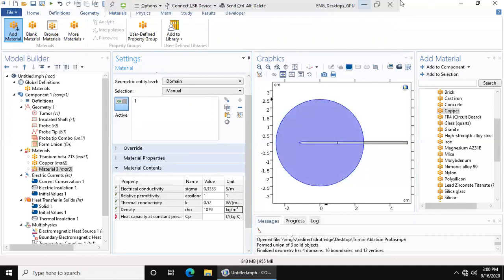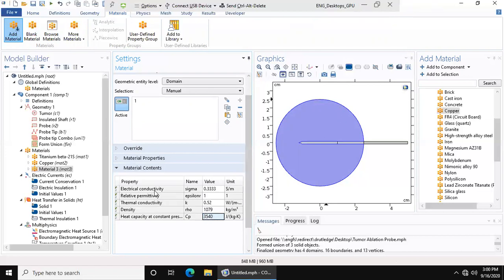The heat capacity at constant pressure is 3540. So electrical conductivity 0.333, relative permittivity is 1, thermal conductivity is 0.52, density is 1079, and heat capacity at constant pressure is 3540.